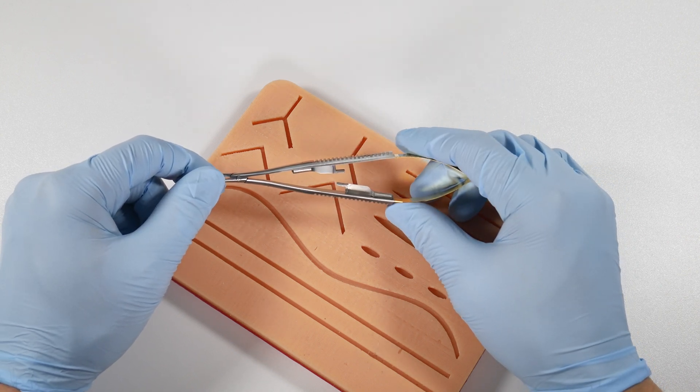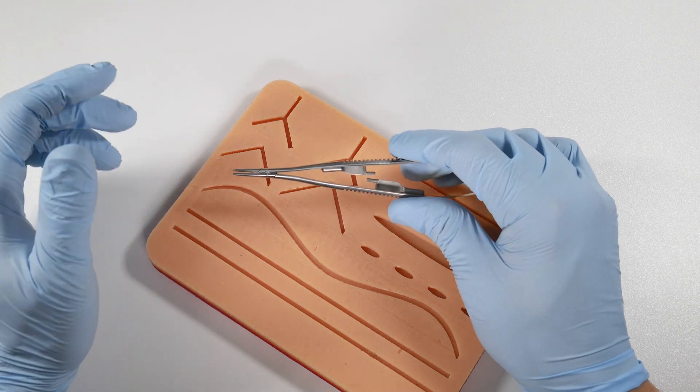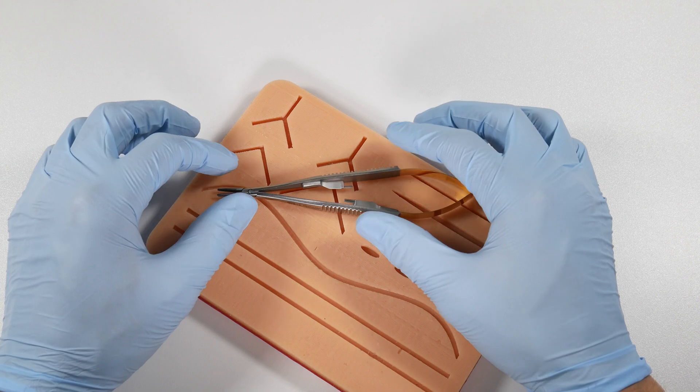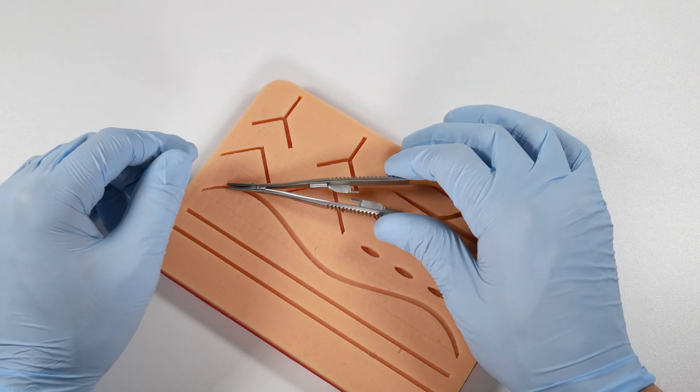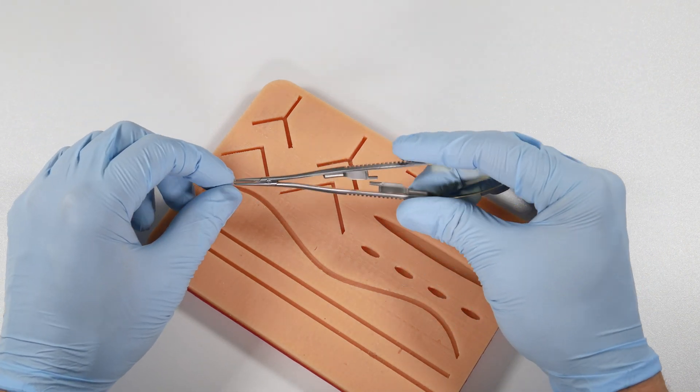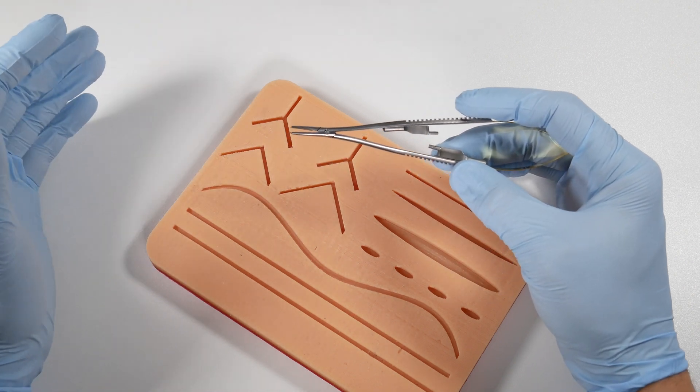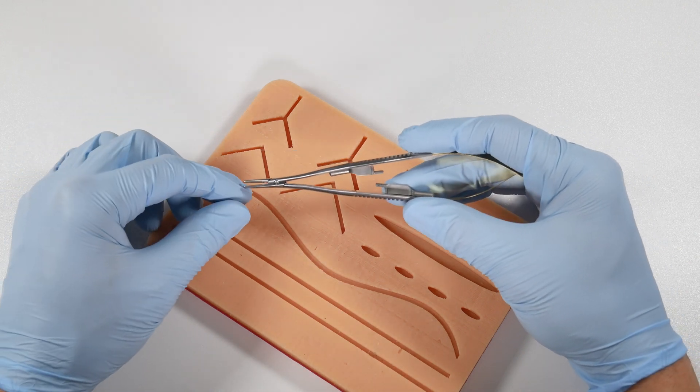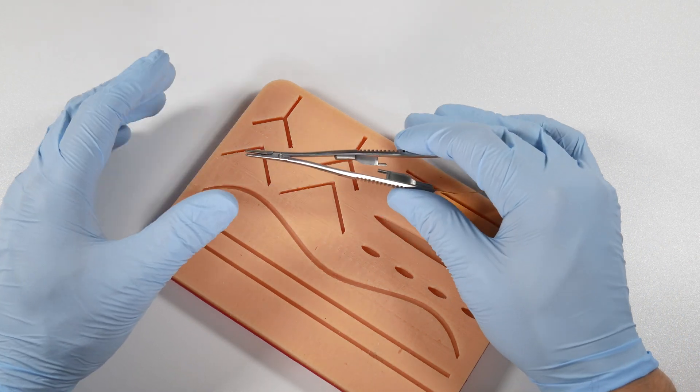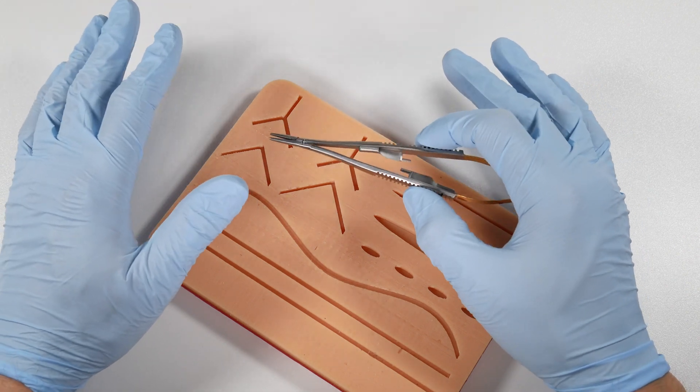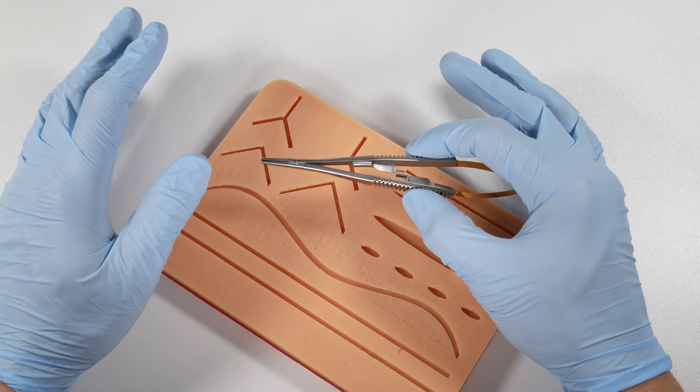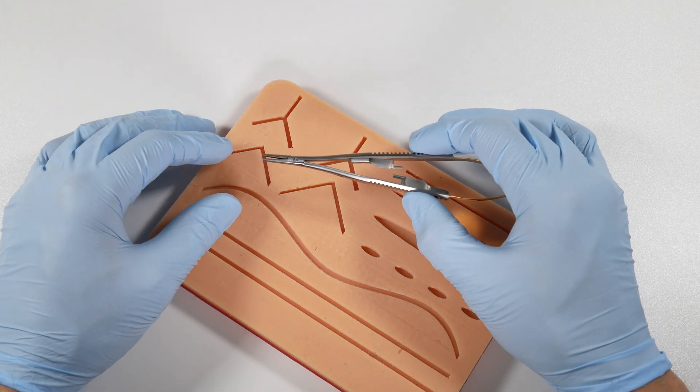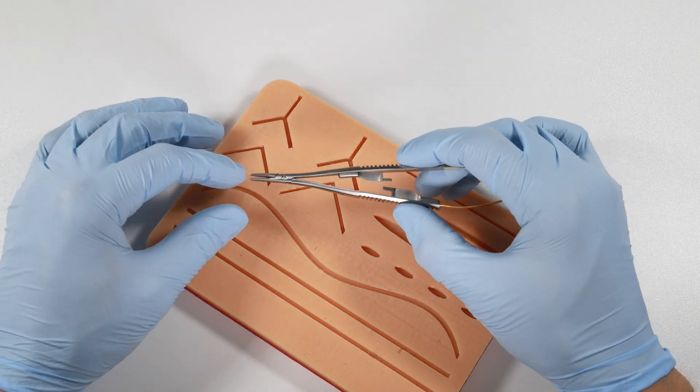I've seen numerous oral surgeons handle tissues, and this isn't a dig against oral surgeons because they're amazing people and very good at what they do. But if we're going to take any lessons or tips from another discipline into exodontia suturing, you probably want to look to the people who have the utmost respect—in fact, probably unattainable levels of respect for most GPs—for the tissues of the mouth. So periodontists use these. We should stop and wonder why.